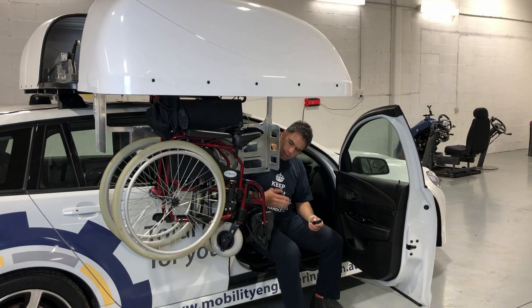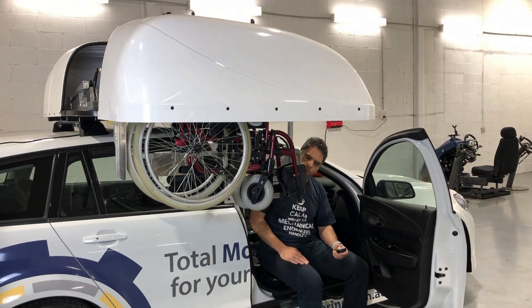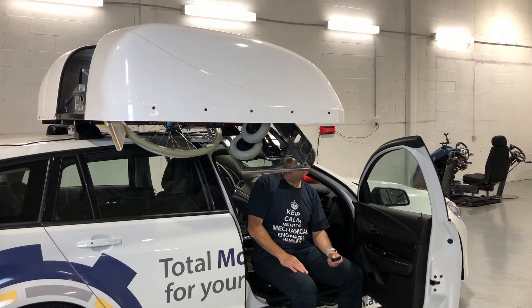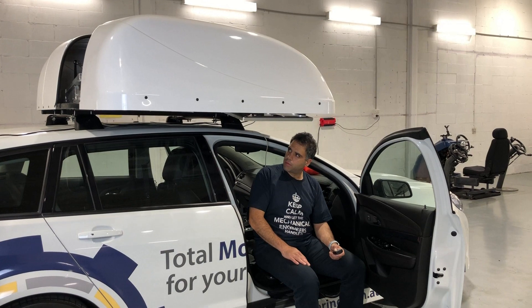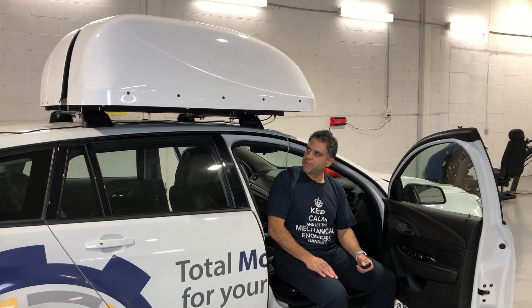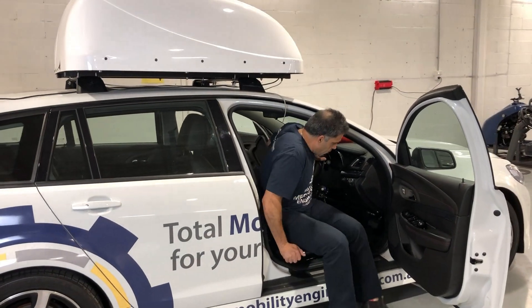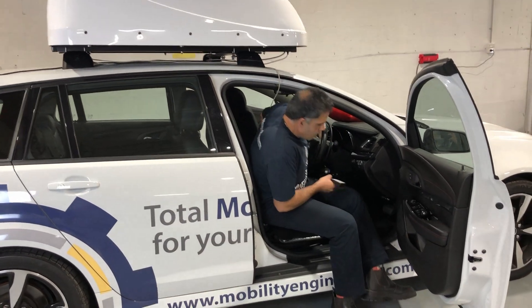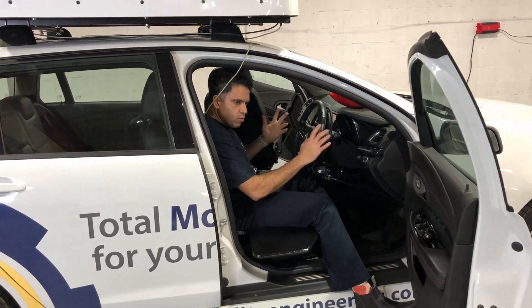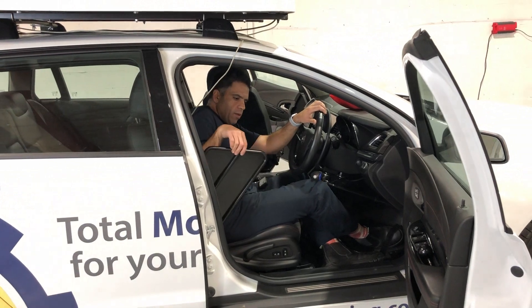In this case, because this wheelchair is sticking out a little bit, I might get the modifier to adjust it a little bit further back — but as I said, this is really more for the purpose of the demonstration. As you can see, effortless — it just goes up, nice and easy, and all the way in. So then basically all I do is transfer myself over into my seat, get myself driving, and away I go — hand controls or whatever it is that we use. This here is a transfer platform, so in this case it would fold away and I'd be able to drive.